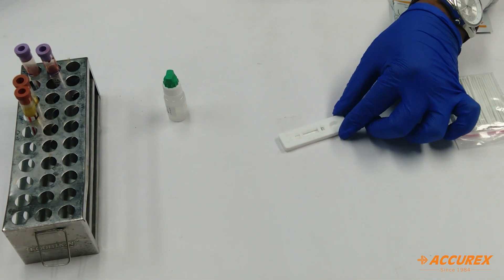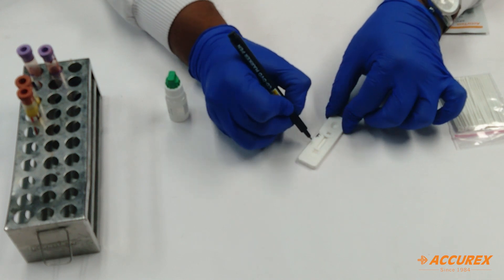So before testing, you should write the patient name on the card and date.